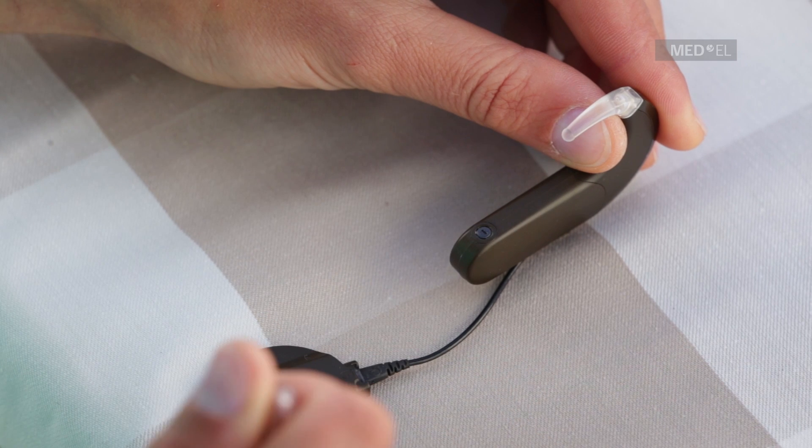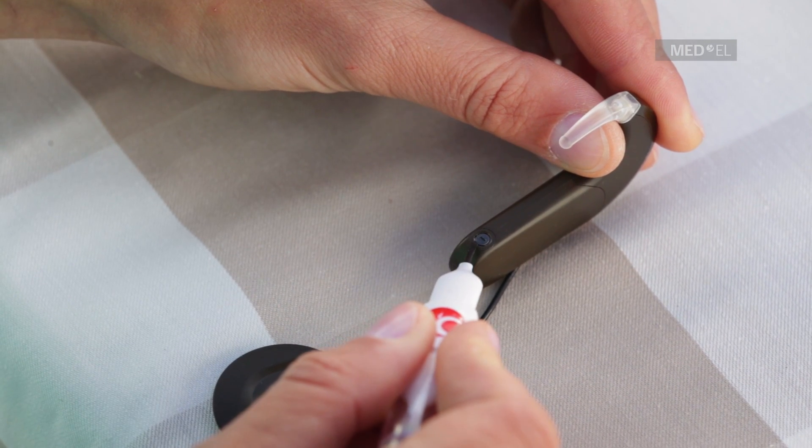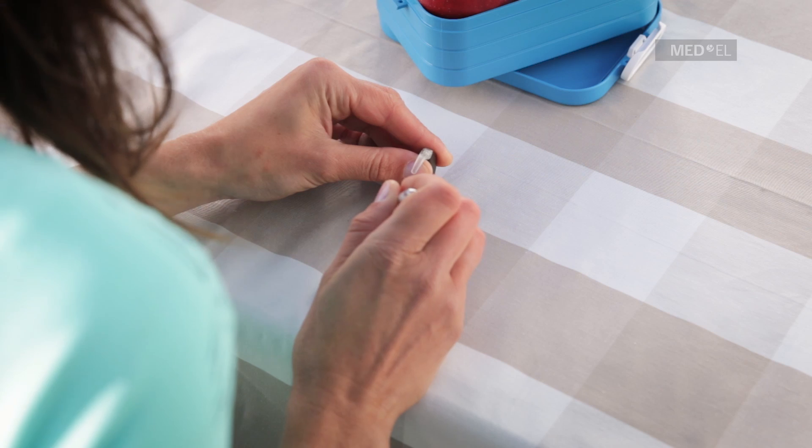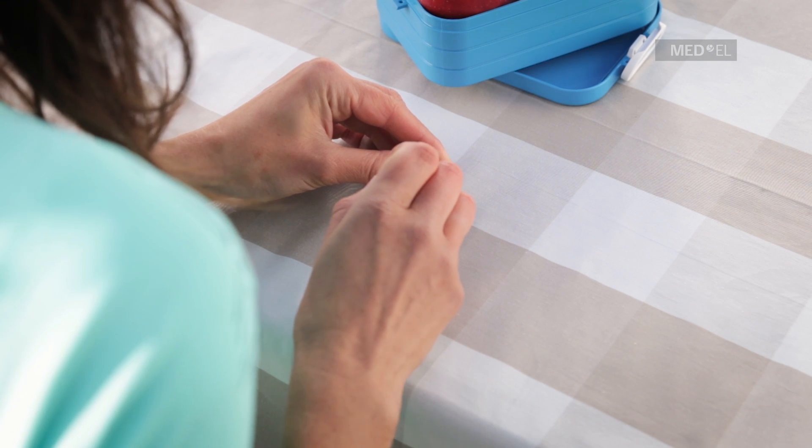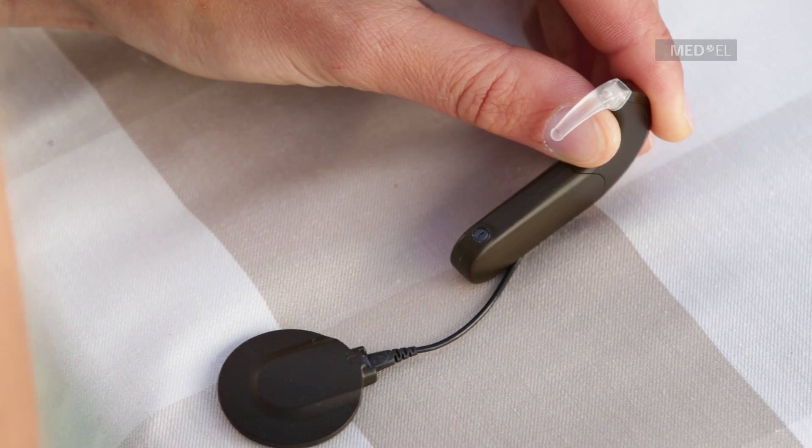The battery pack is unlocked when the notch is in a vertical position. If it is not in the unlocked position, use the screwdriver provided with your Sonnet Kit to turn the lock counterclockwise to the unlocked position.